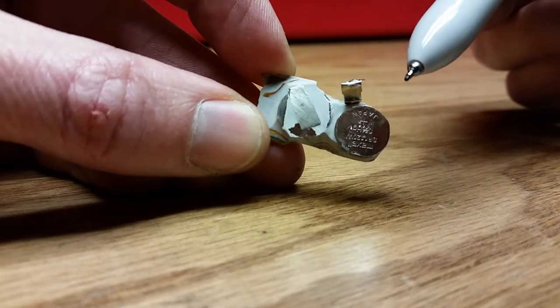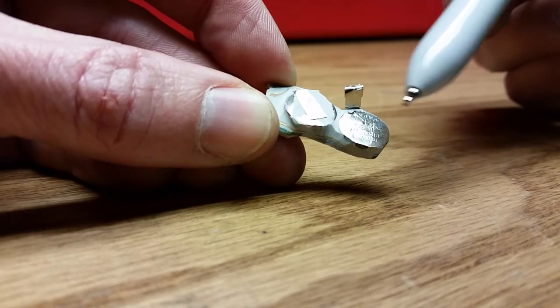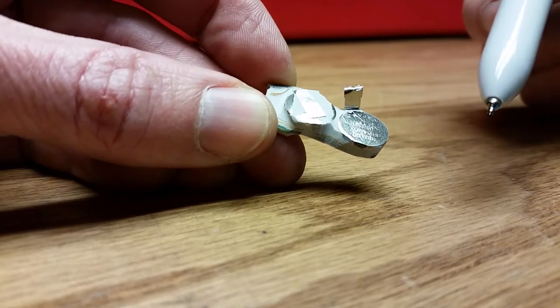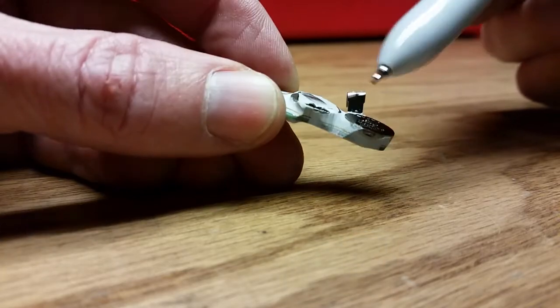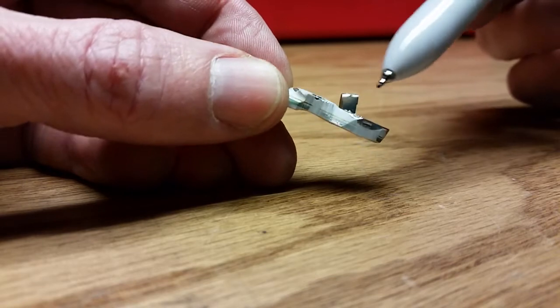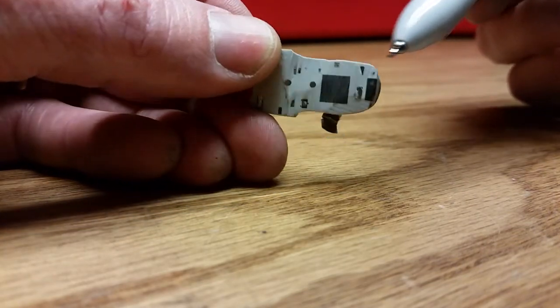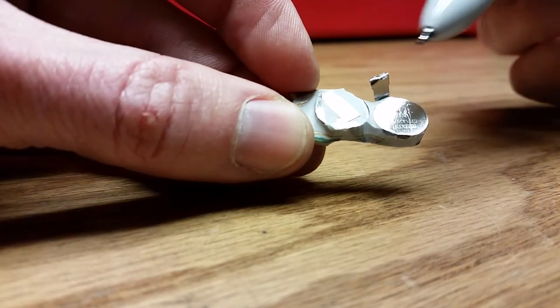This is a mod that a lot of folks won't have the equipment or wherewithal to run, but I thought the information was interesting. The only reason we ever have to throw these things away and get a new one is because the batteries go dead. So if the batteries could be replaced, ingenious folks could replace them and move on. It was really hard to get at these components because of the epoxy — they actually put this thing in a fixture and form the epoxy around the components, which is really clever because it's not going to make replacing the batteries easy.